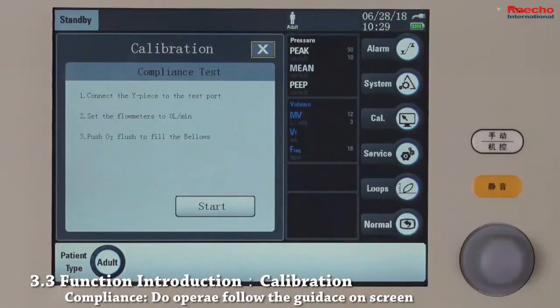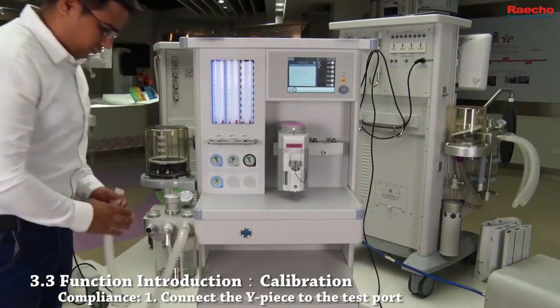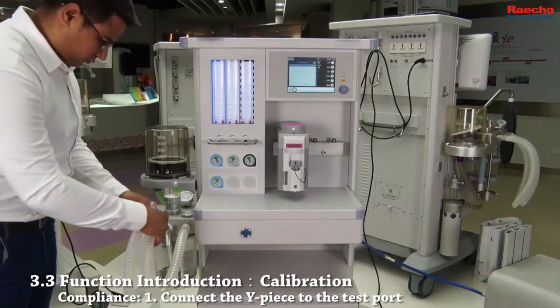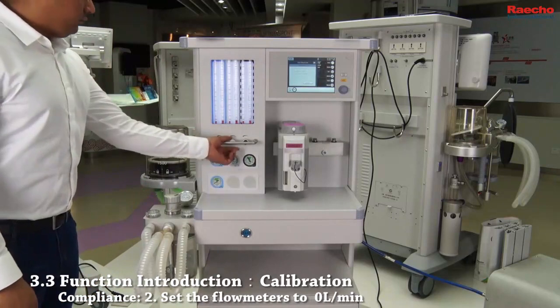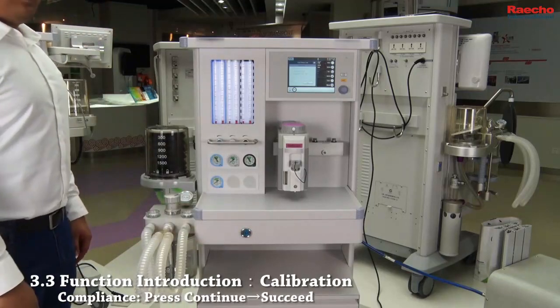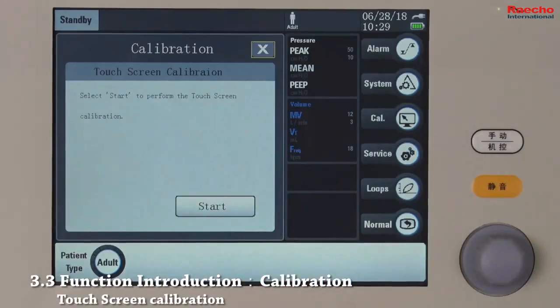Touch here for compliance test. First, connect the Y-piece to the test port. Second, set the flow meters to 0 liters per minute. Third, push O2 flush button to fill the bellows. Press start. Done. Press here to enter the touchscreen calibration.